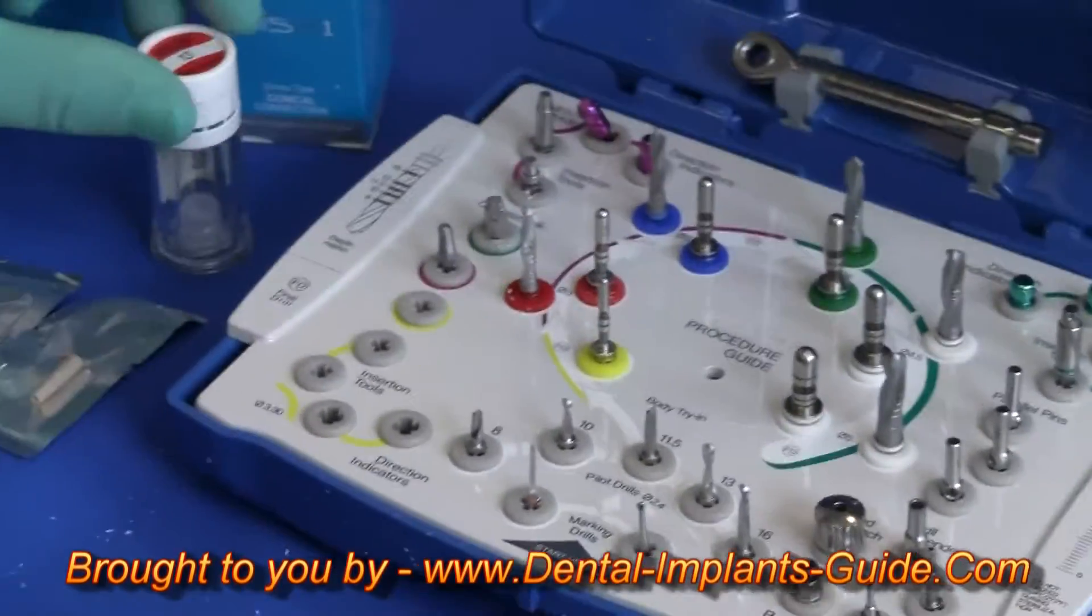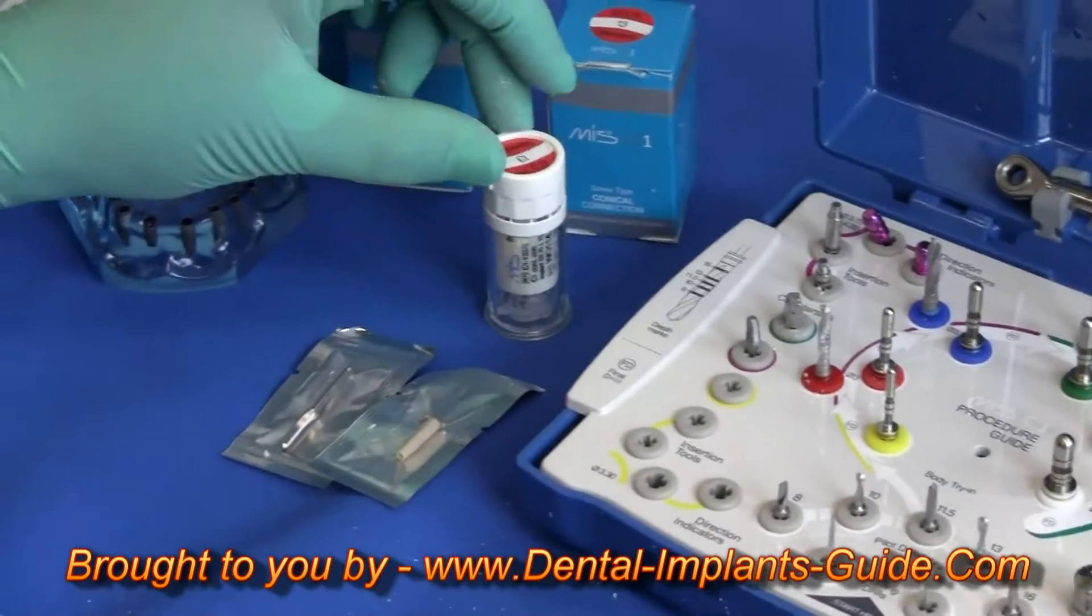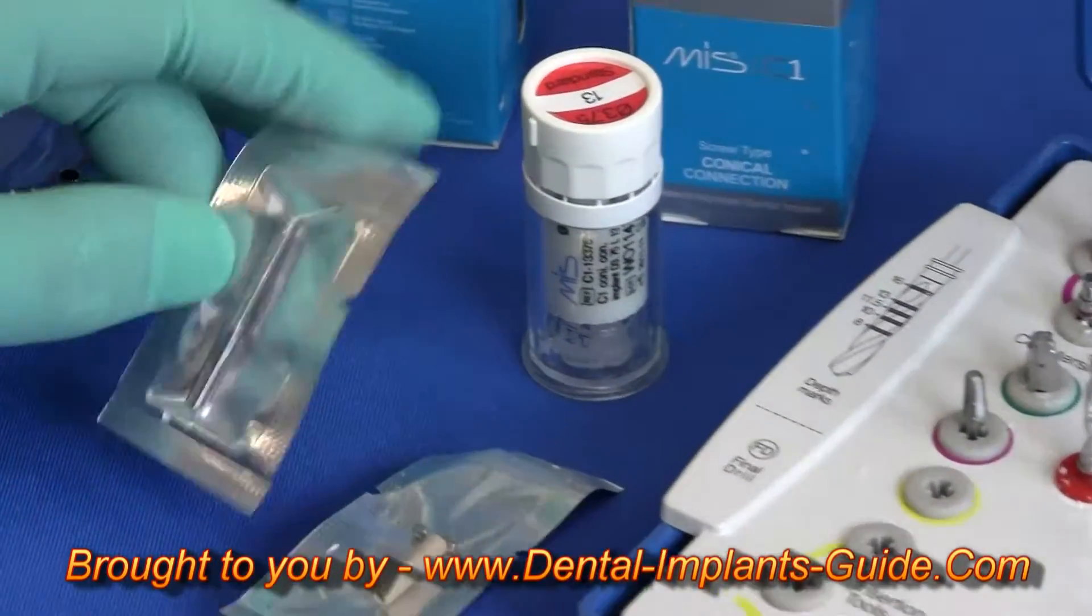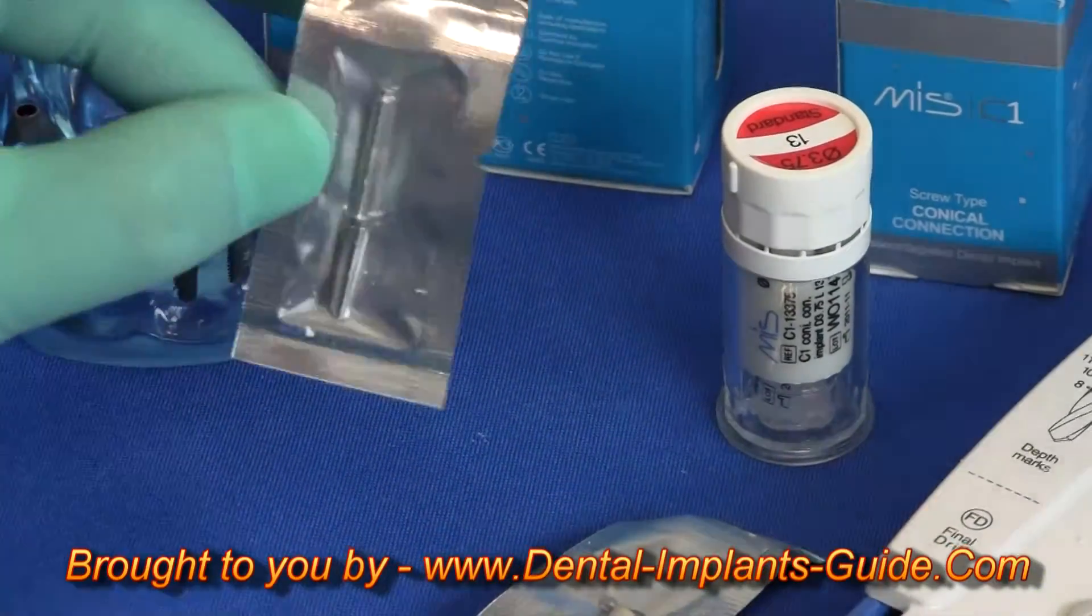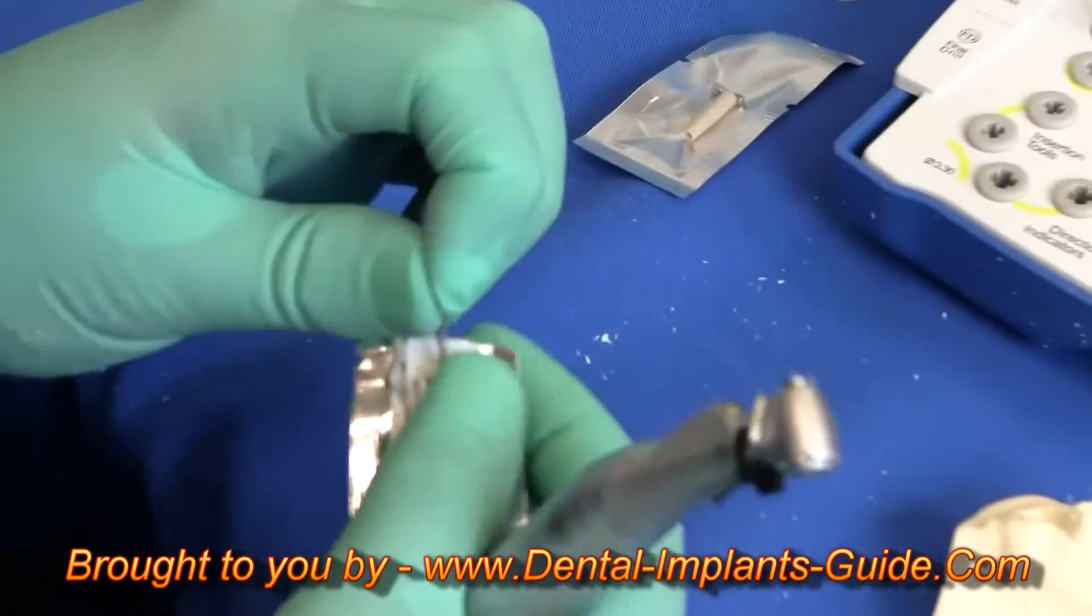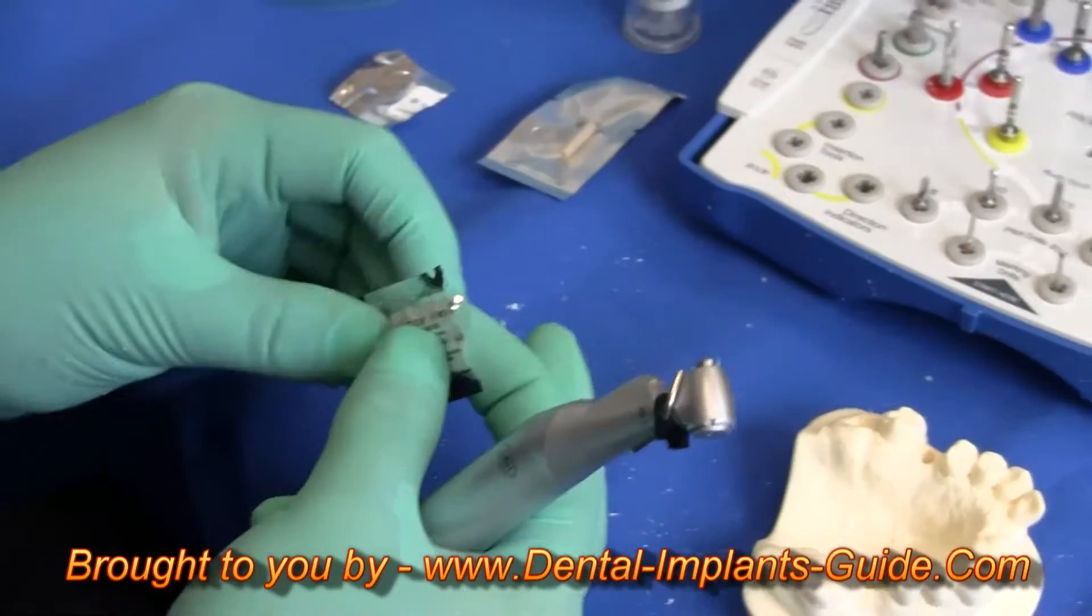Much like MIS's seven implants, each C1 implant comes packaged with its own single-use sterile sealed final drill. This one is exactly the length I would need for this 13mm implant.